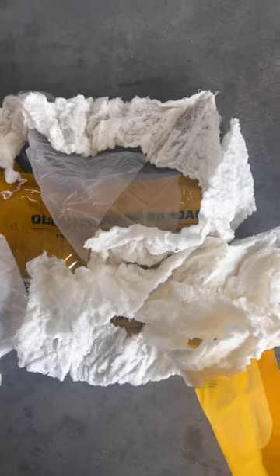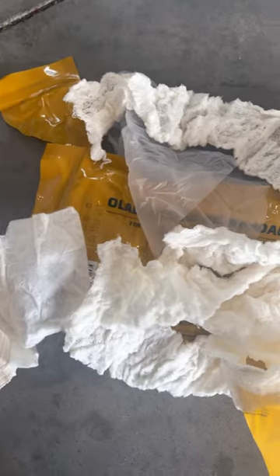It has this little cup here that's going to apply pressure to the wound. It also has a piece of plastic tucked inside that could be used for an improvised chest seal. And also tucked inside there is this gauze that could be used for wound packing.